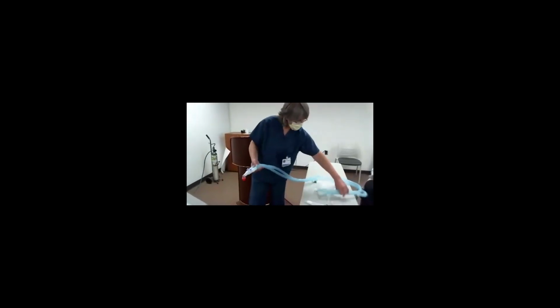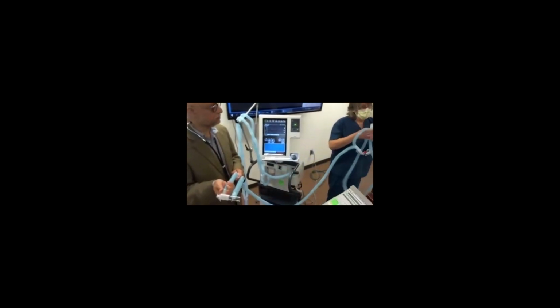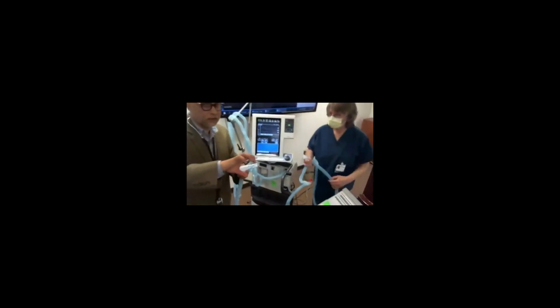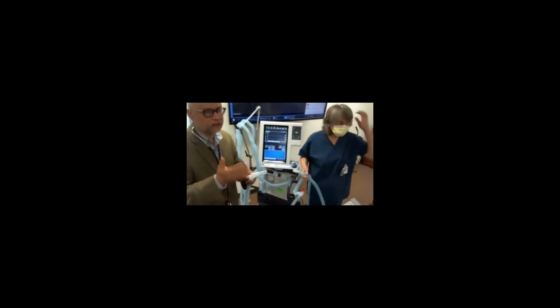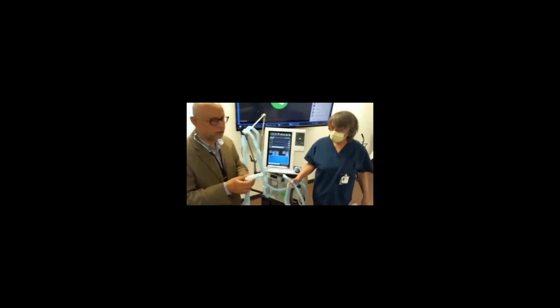But basically, instead of one hose coming out, at the flow at the machine, we would split it. So now you have here, I'll take that hose here, something like this, one patient and the other patient. So you have 2 of them. I would be here with a T, and then the other patient, I would breathe in, and then I would breathe out to a hose here. But there is a filter, okay? There's a filter around, so that prevents bacteria and viruses going from one to another. Hopefully that filter will prevent it. Everybody's got their own filter.